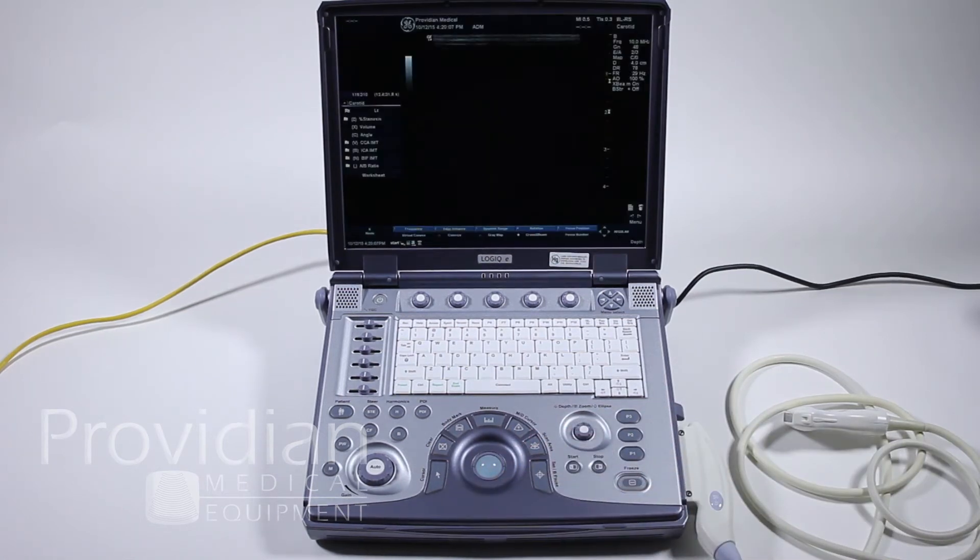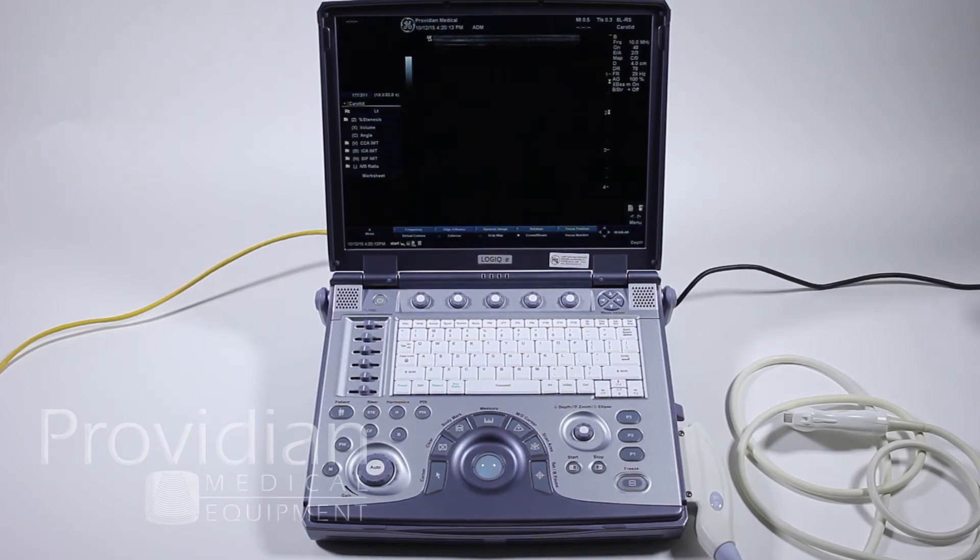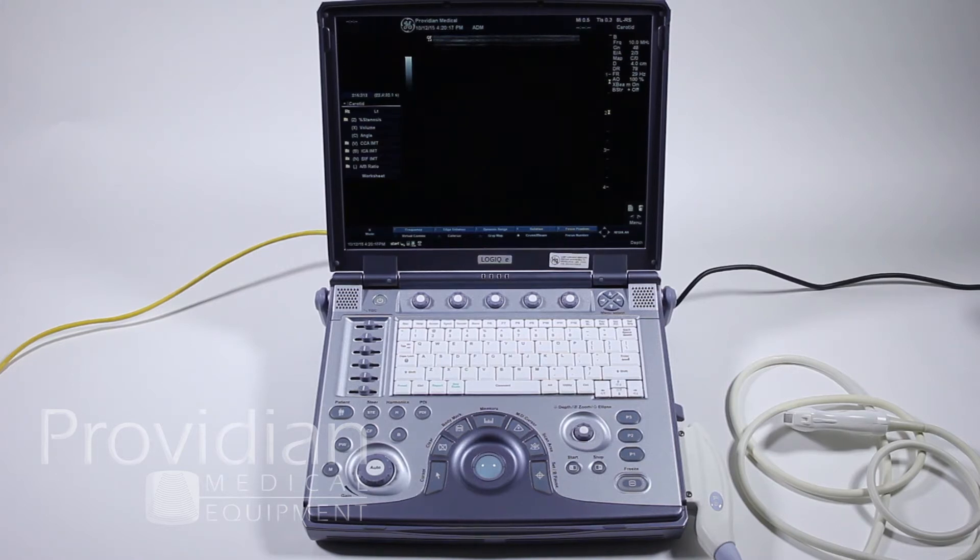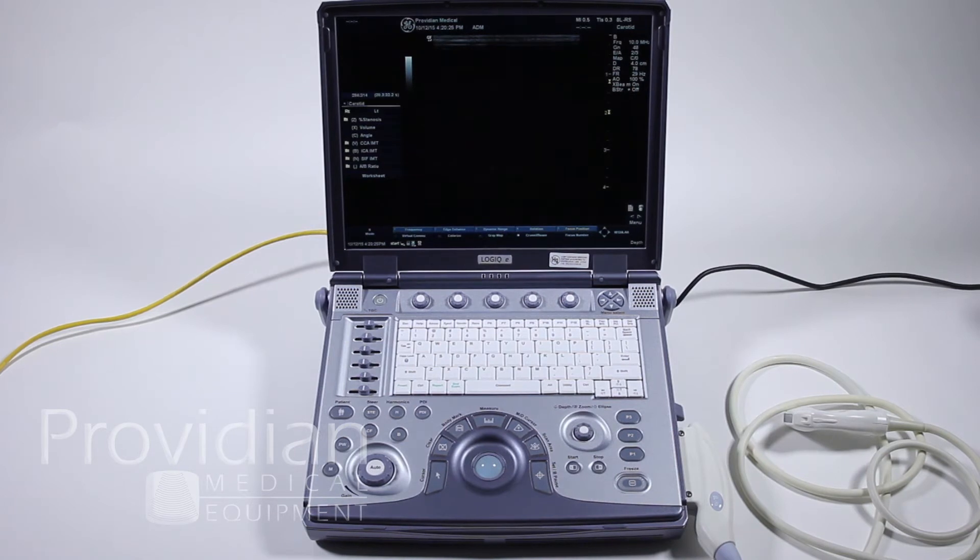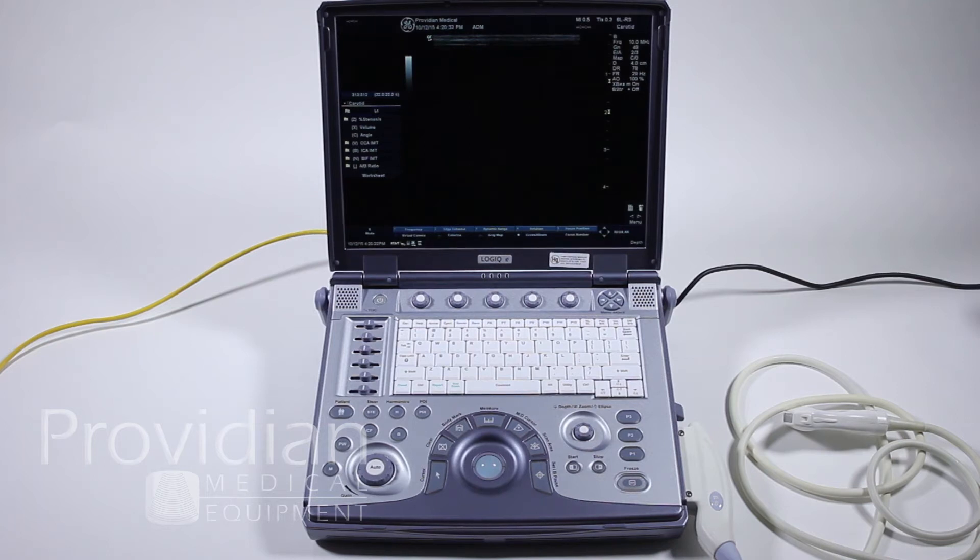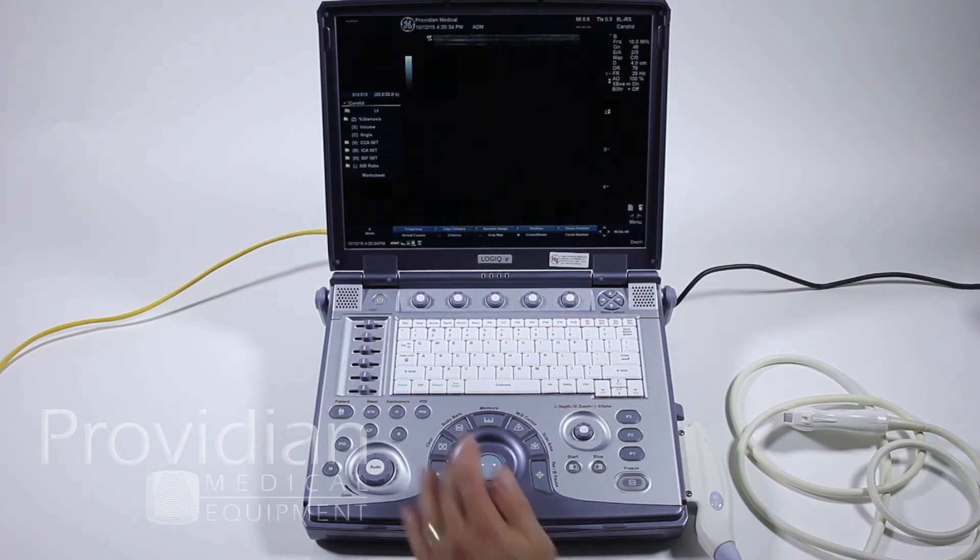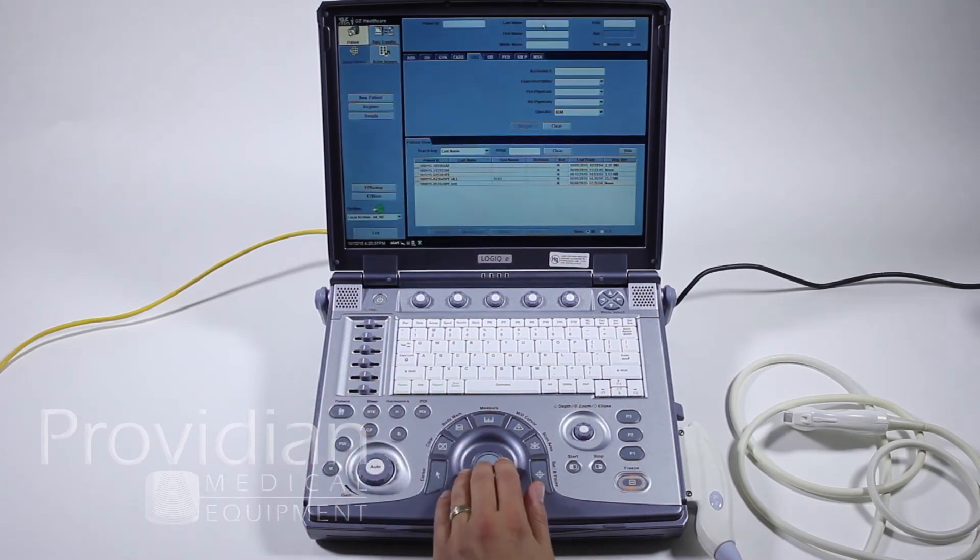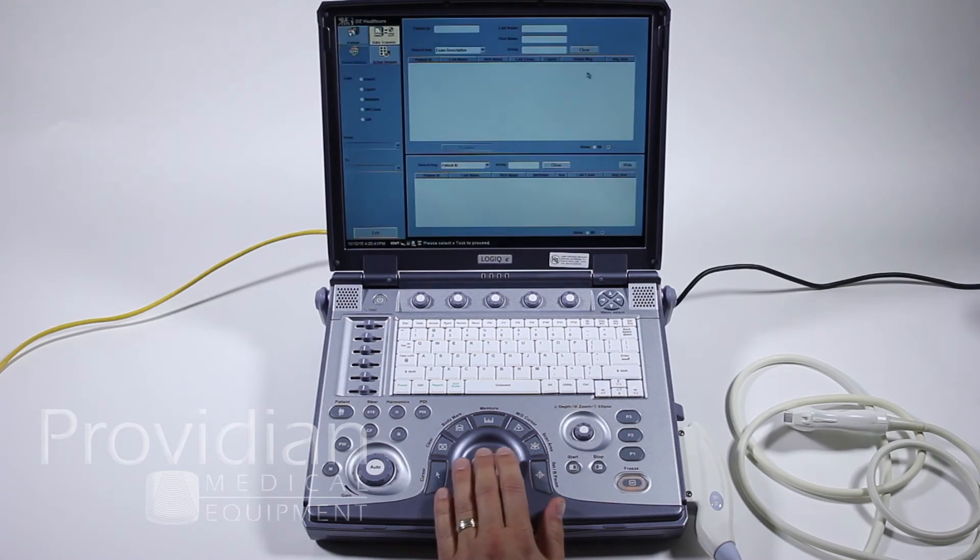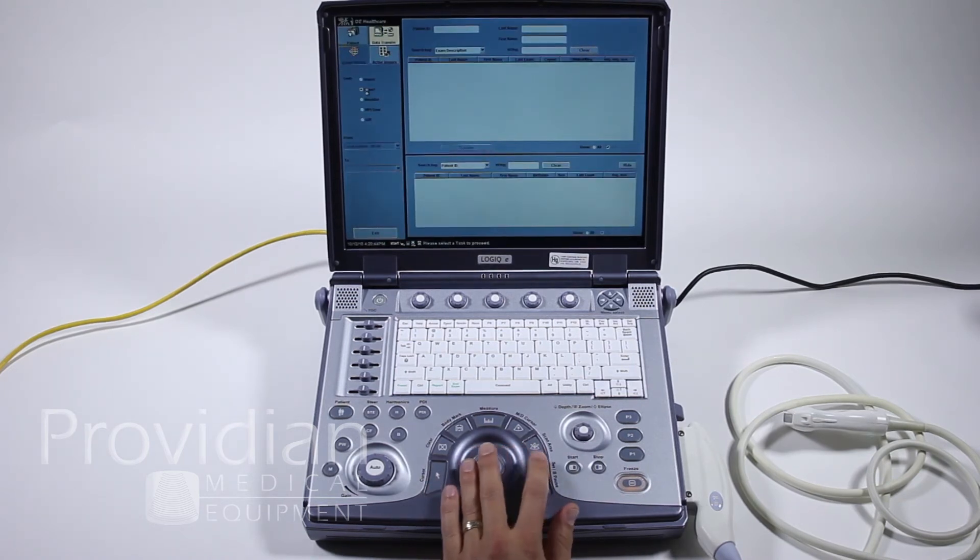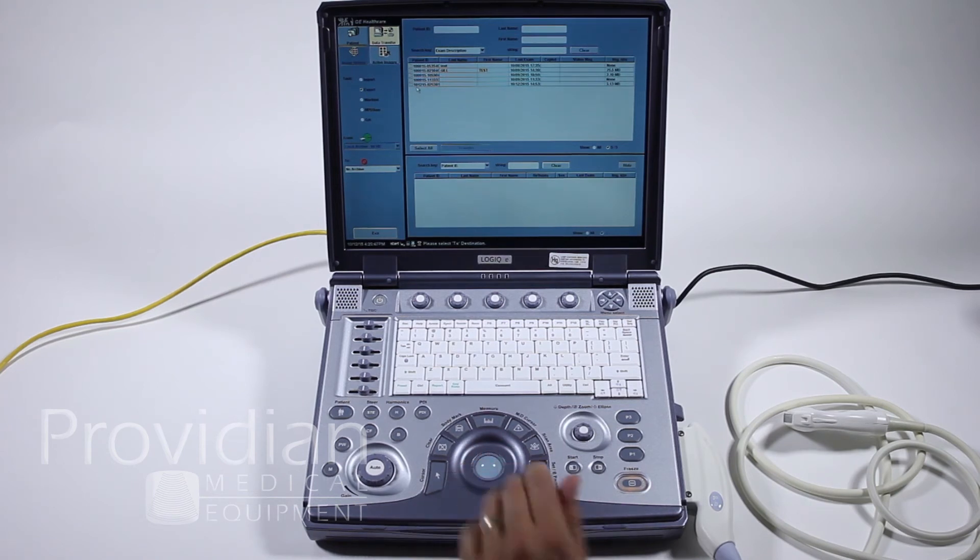Next, we'll get into DICOM transfer. This is a little more complicated. I usually avoid addressing this situation because every network is different, and there's no way somebody remotely, such as myself, if you call for support, there's nothing we can do because it all depends on your network and what's going on on the other end of a server. I will show you where to go and some of the important things of note and where the biggest hiccups are when exporting to a network or DICOM server.